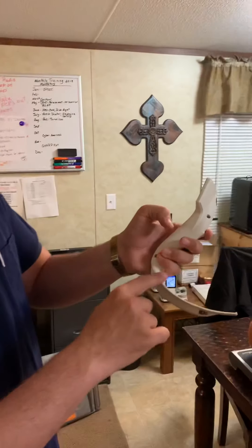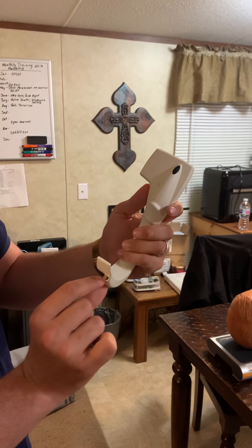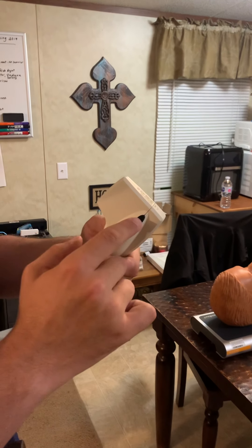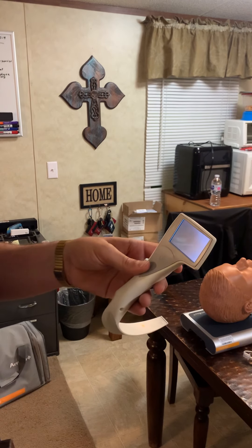So it's a Mac blade configuration. At the bottom here, you've got both the camera and the LED light. And then you've got the screen right here. So this black button — you turn it on, it boots up, and you're ready to roll.